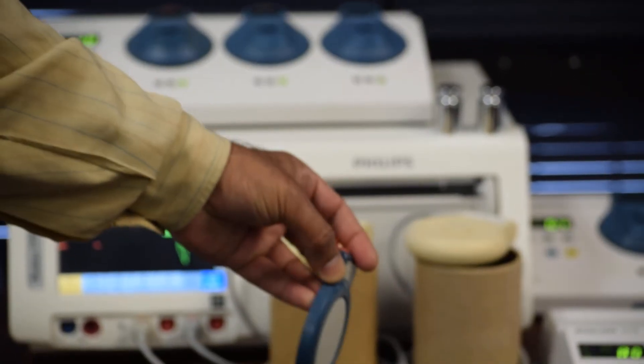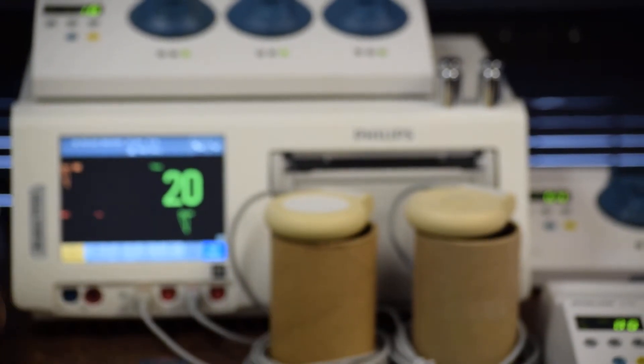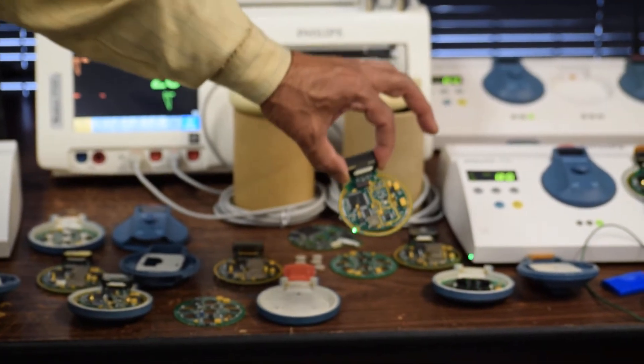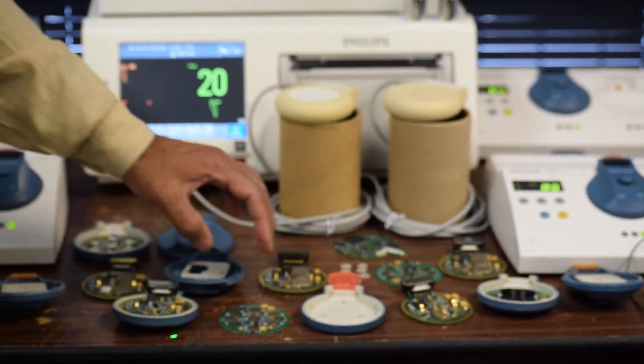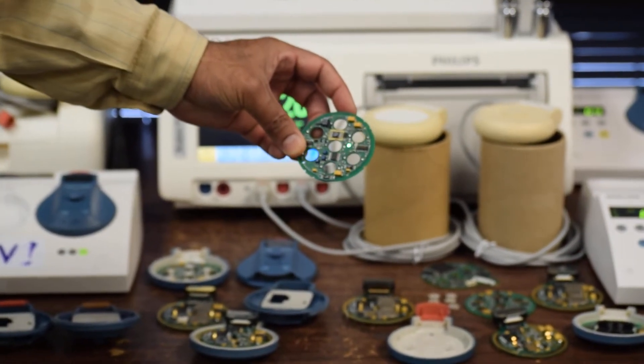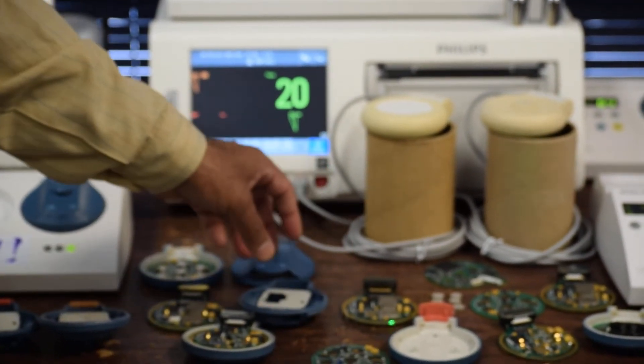This is the bottom case — all crystals are removed. You can see the crystals here. This is the CPU board from the same transducer, repaired at the component level. There is also a front-end board, which is a transmitter-receiver board that has been repaired and tested independently.